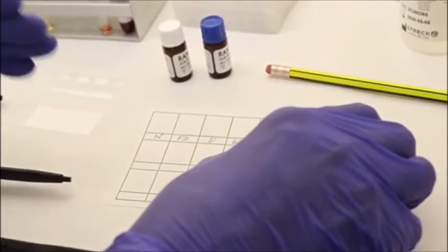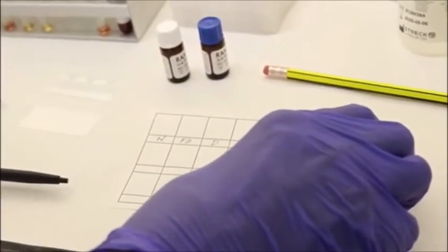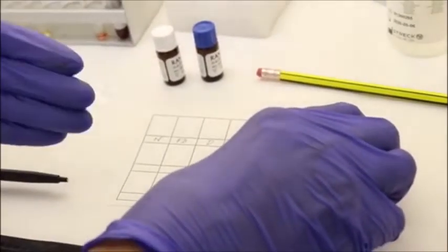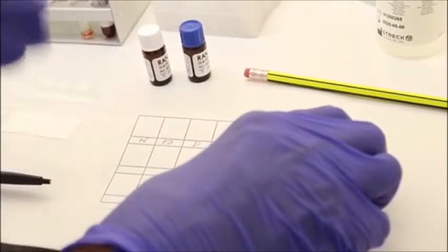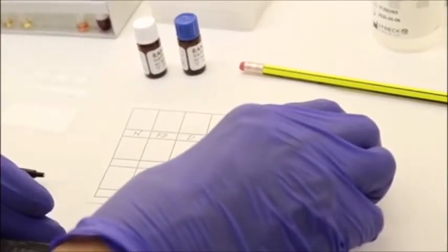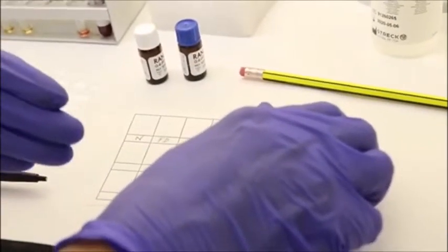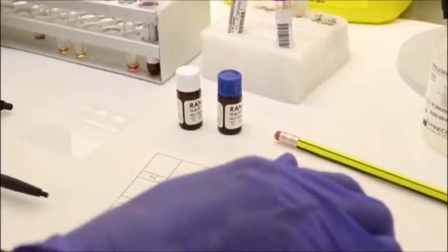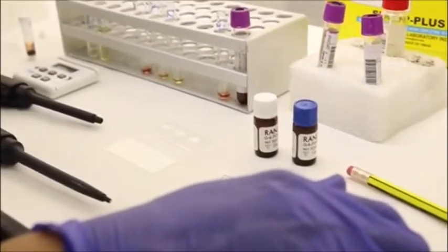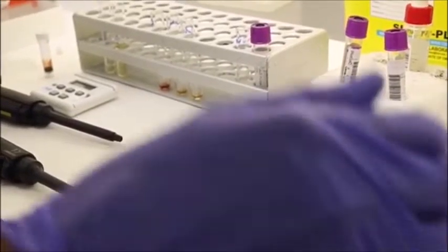the presence of G6PD is detected by an indirect method, by detecting its byproducts. It is the byproduct of the reaction of glucose-6-phosphate and NADP.